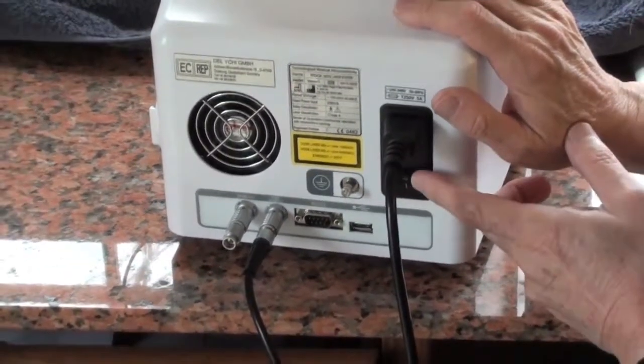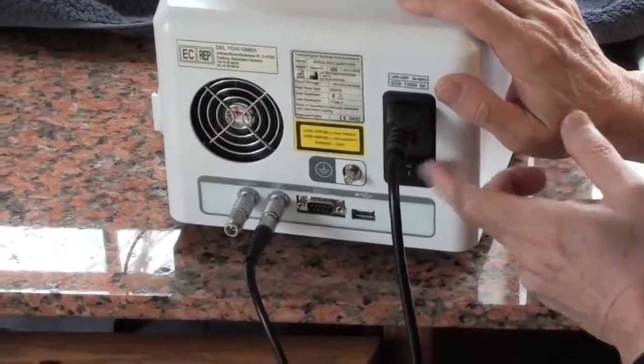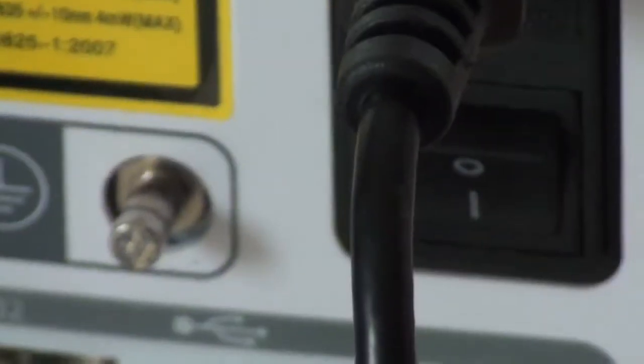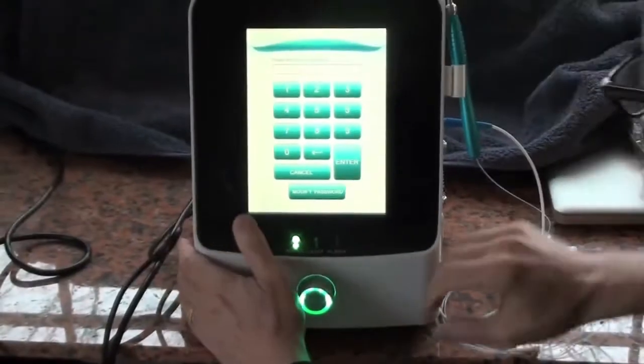That's how you turn it on, one and zero. In fact, when you turn this around, you'll see the screen coming up. So in the one position it comes on. Now we have the screen.